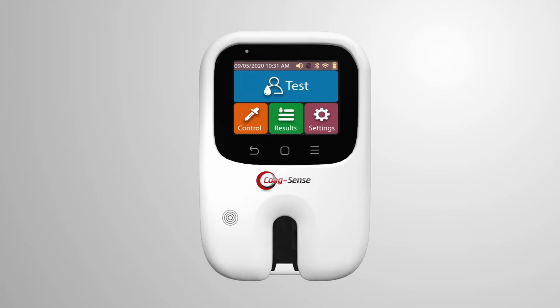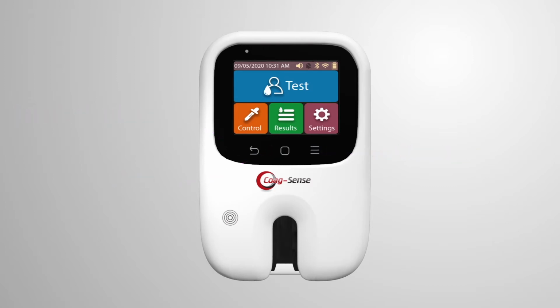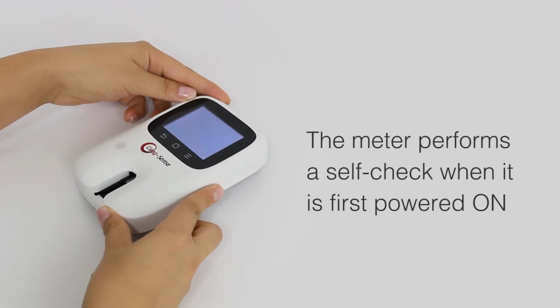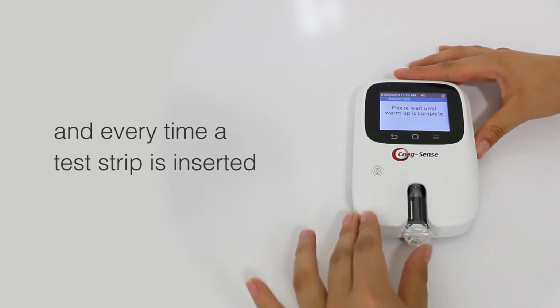There are 3 touch buttons: Cancel or Previous Screen button, Home Screen button, and View Menu button. The color LCD touchscreen shows icons for patient test, control test, results, or memory and settings. The meter performs a self-check when it is first powered on and every time a test strip is inserted.